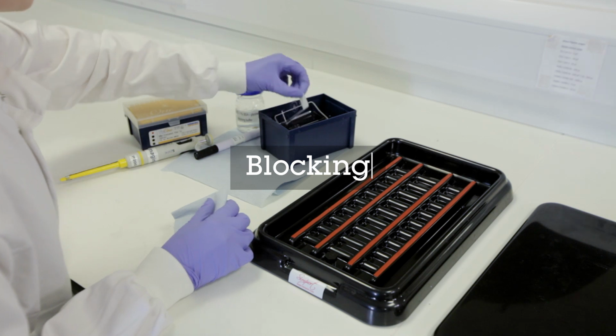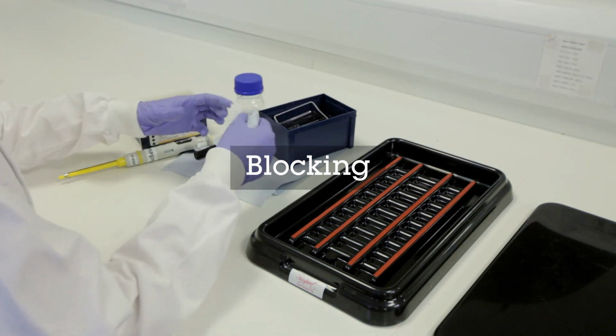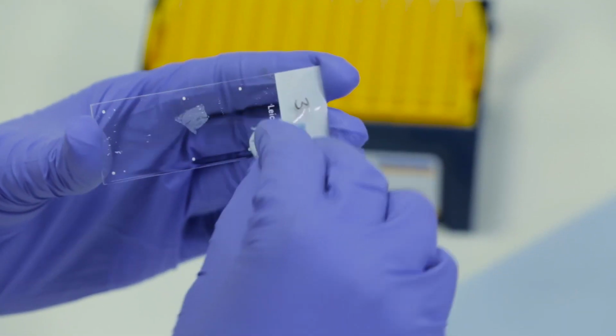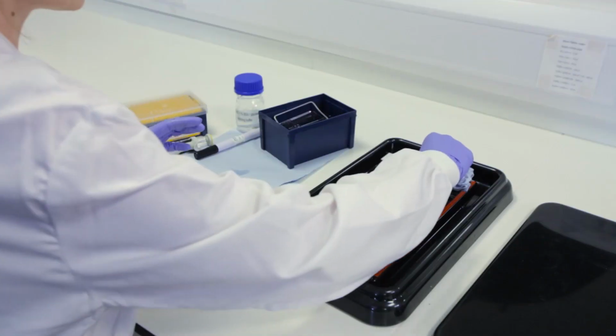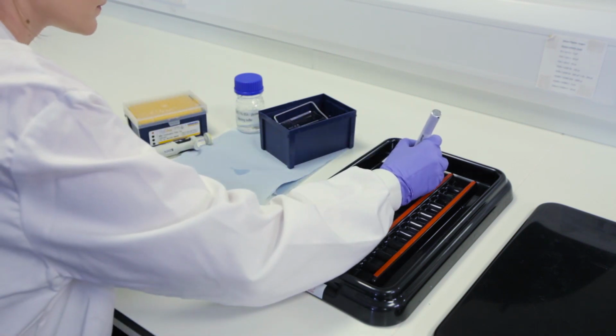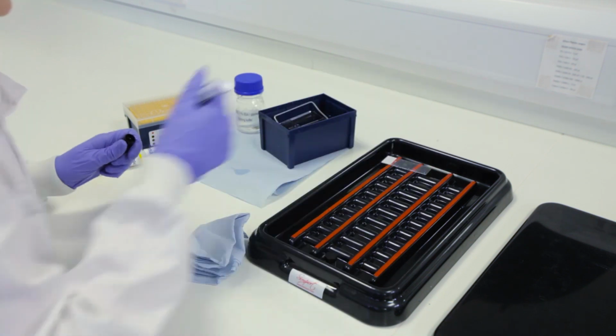Next, the tissue sections need to be blocked to minimise non-specific interactions of the antibody. Dab off any excess wash buffer and draw a hydrophobic barrier around the tissue section using a pap pen. The blocking solution can now be pipetted directly over the tissue section.